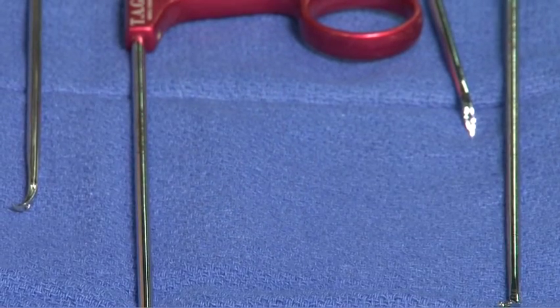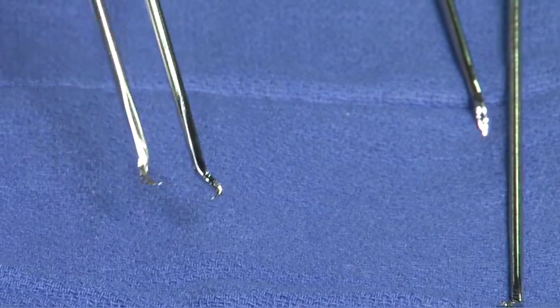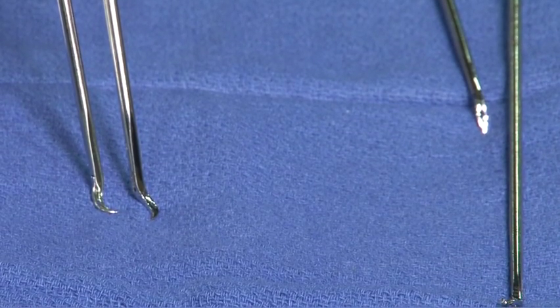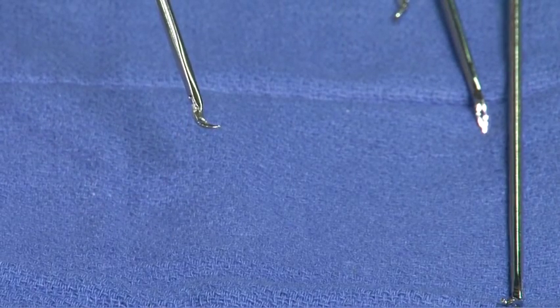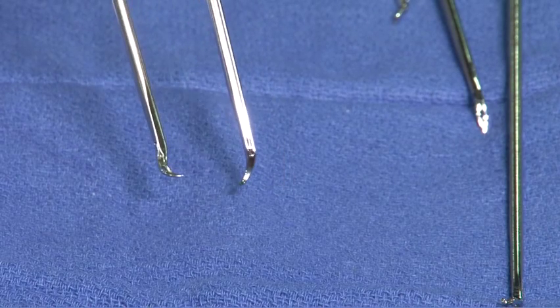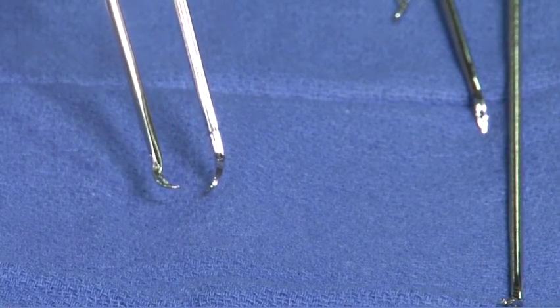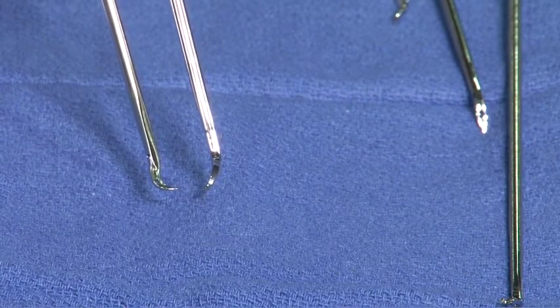The same mechanism is applied with the six-ter devices. The difference between the six-ter device and the clever hook device is the angle and radius of curvature. We can see that the angle and the radius is different to allow for different application — either the labrum for the six-ter or the rotator cuff for the clever hook.